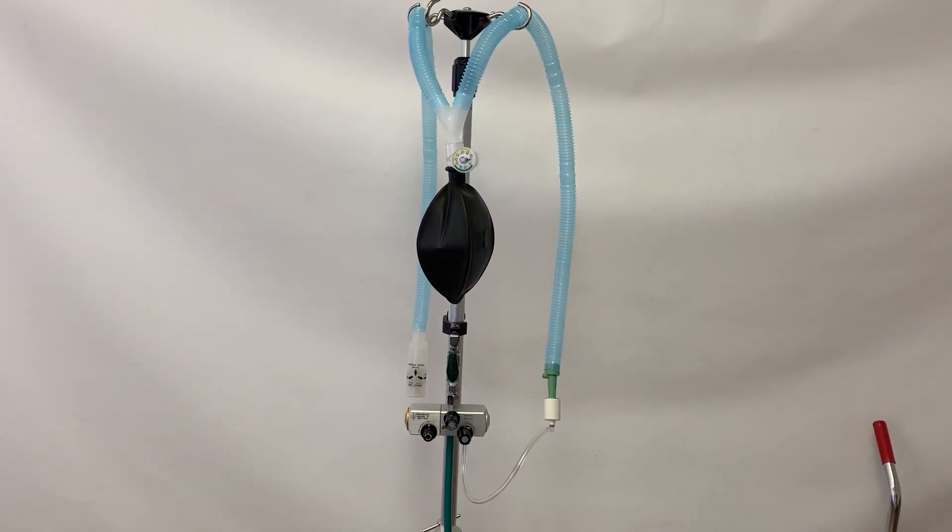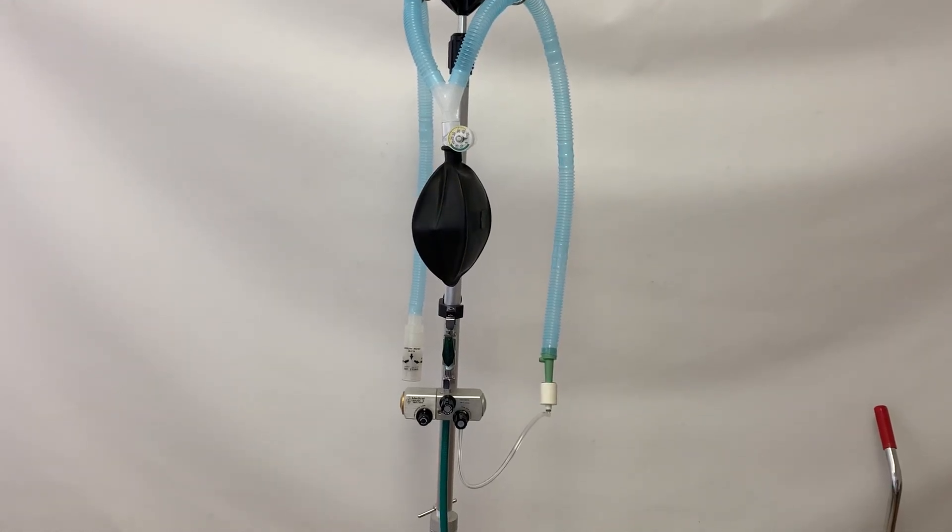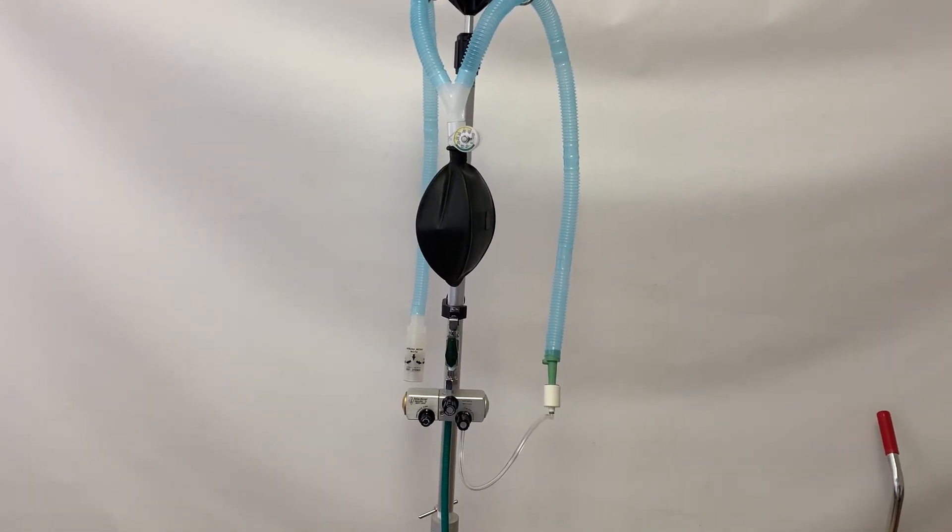This is a time cycle pneumatically powered ventilator with inspiratory and expiratory time controls as well as a flow pressure control.